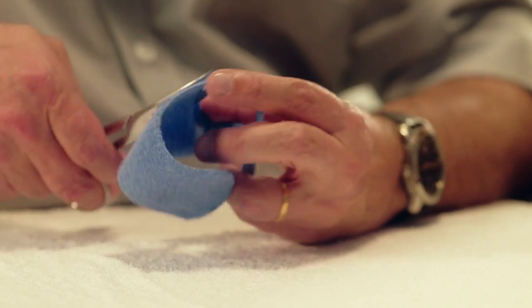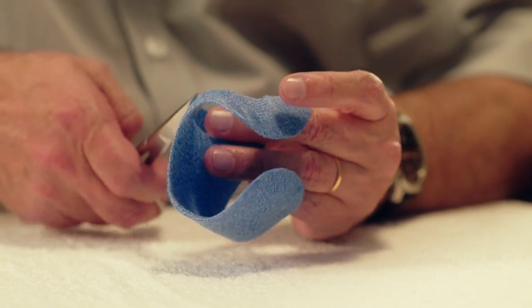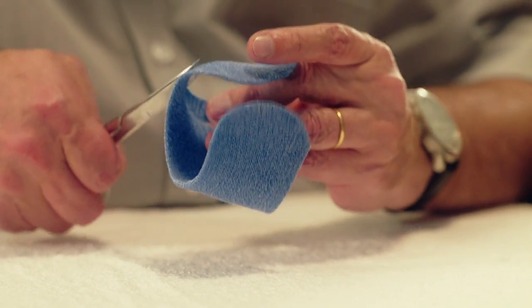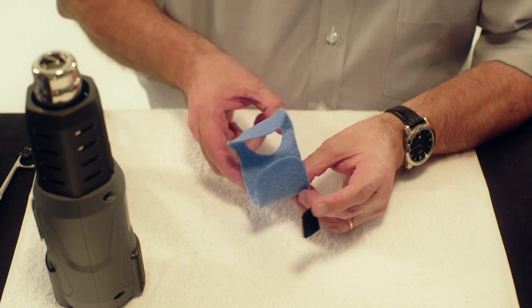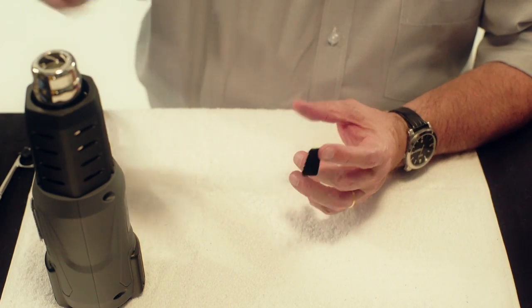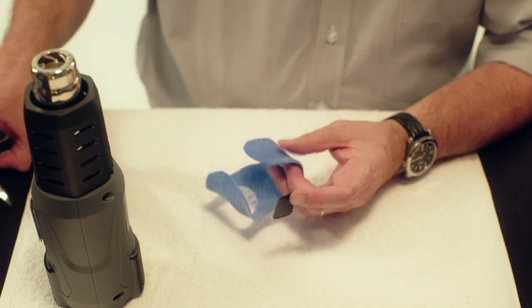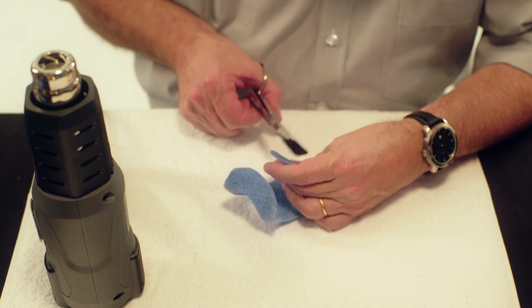Take a piece of self-adhesive velcro hook. Heat one side of the forearm based portion with a heat gun, briefly heat the self-adhesive glue and stick together.